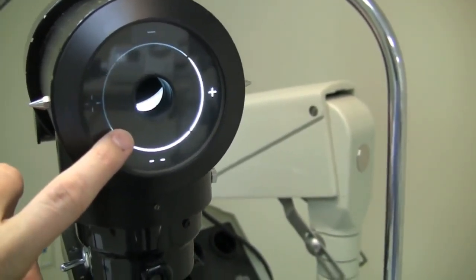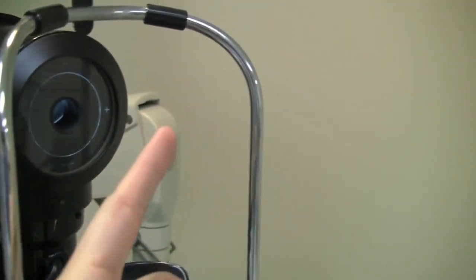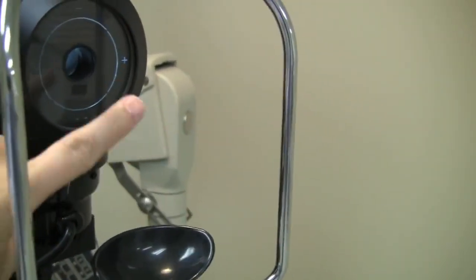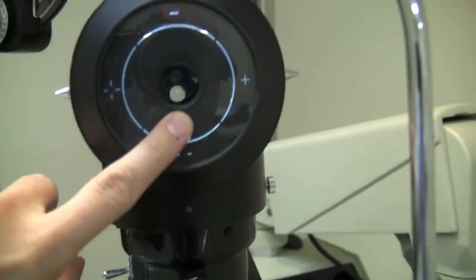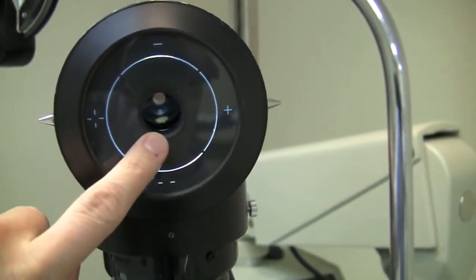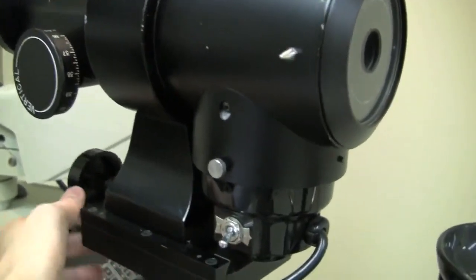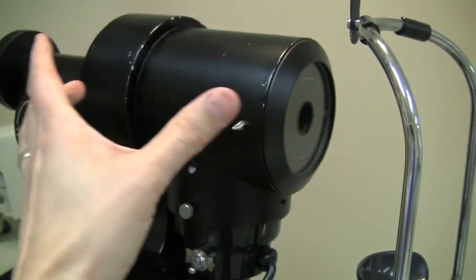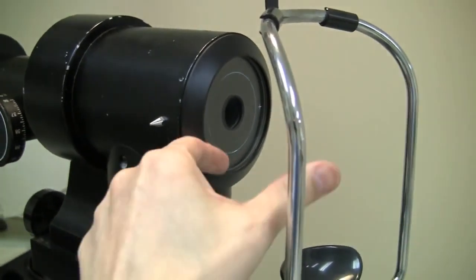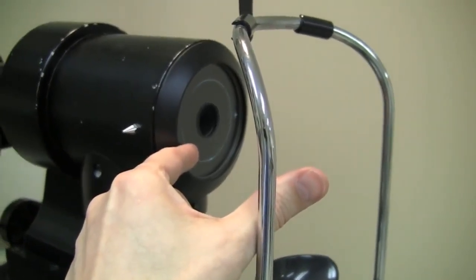So light will leave the keratometer, it will go towards the patient's eye over here, it will reflect off of their cornea, and then go back through into the instrument. So if you look down the tube, you will see some lenses that are in there, and they're all focusing things inside the instrument to get the measurements that you take. So what you're doing then when you turn the focusing knob to move the whole thing back and forth is to get the target here, the object for the eye, exactly the right distance away from the eye. And that way mathematically everything will work out with the instrument.